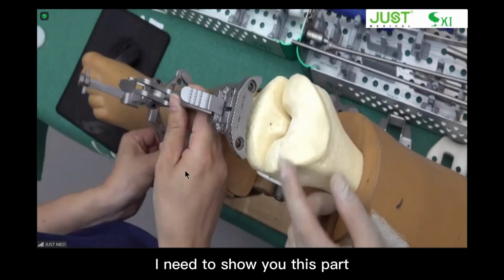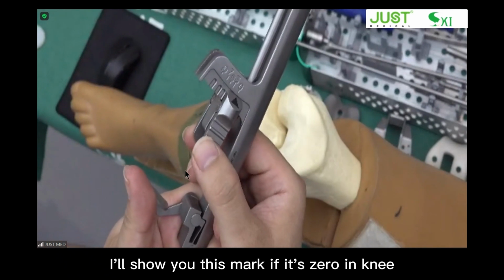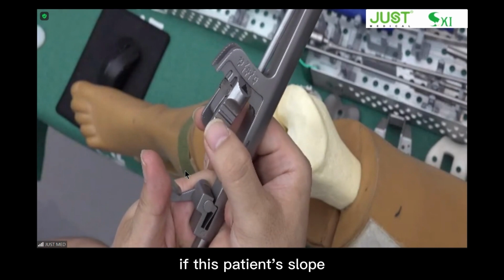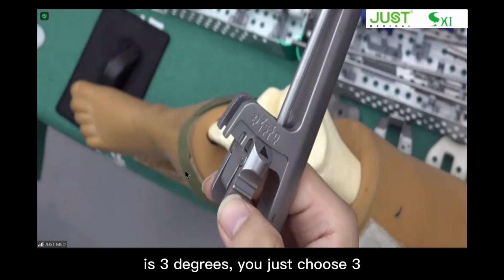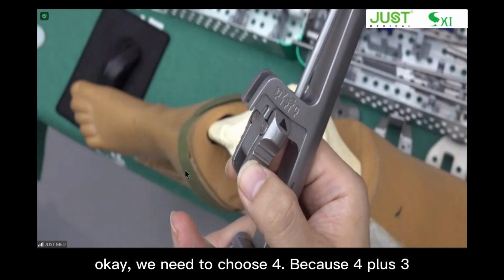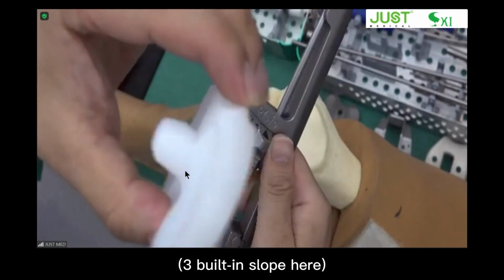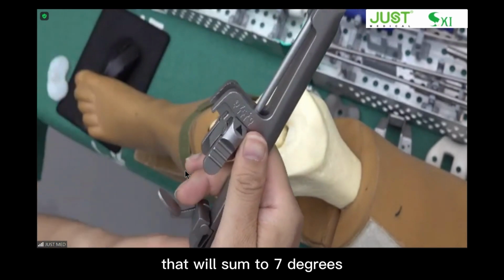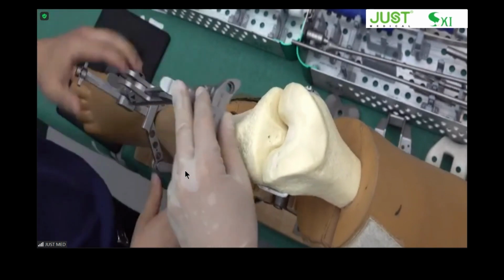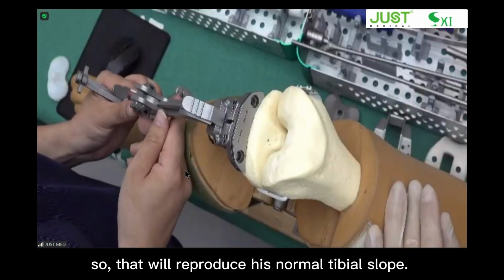I need to show you this part. I'll show you this mark. If it's 0, it means it's parallel to the anatomical axis. Like I said, if this patient's slope is 3 degrees, you just choose 3. If his slope is 7 degrees, for example, we need to choose 4, because 4 plus 3 built-in slope here will sum to 7 degrees. So that will reproduce his normal tibial slope.